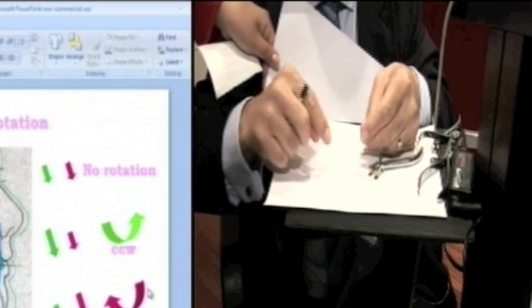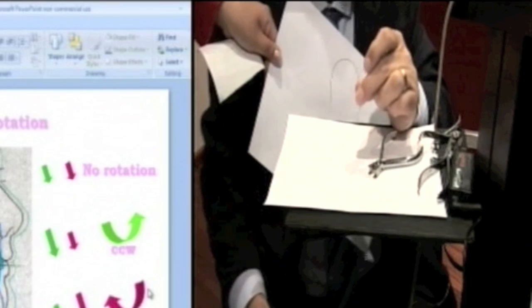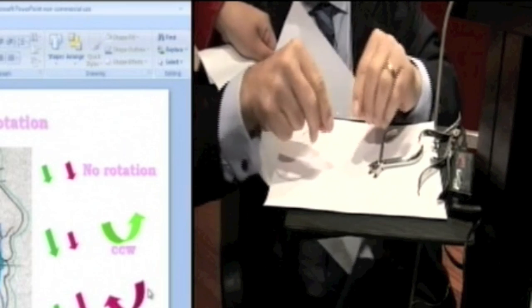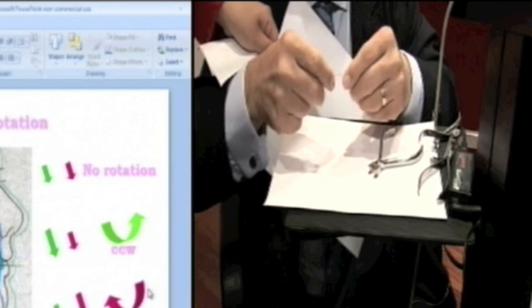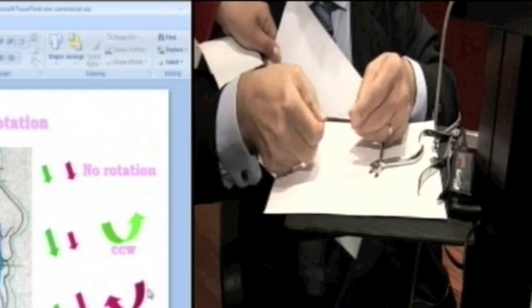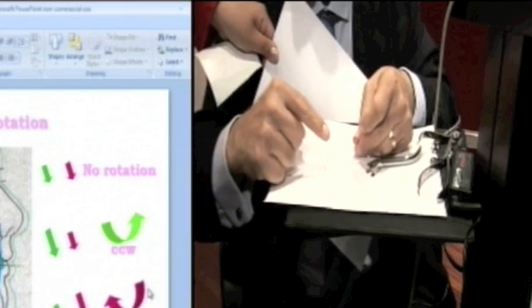But as you place the torque, can you see how your arch form tends to constrict? So then you'll need to either manually with fingers or with a de la Rosa, return back to the normal arch form. But that's an individual torque.